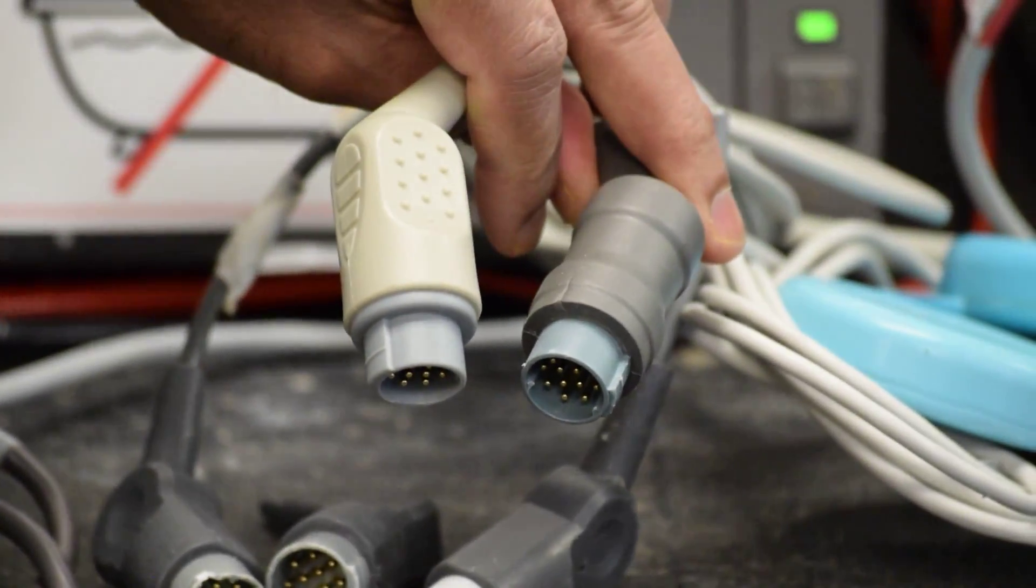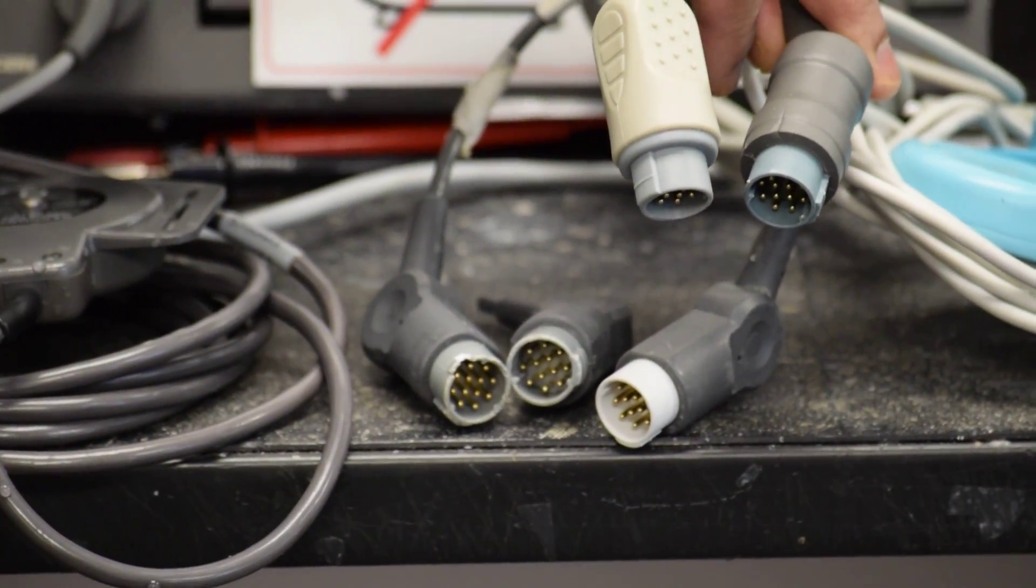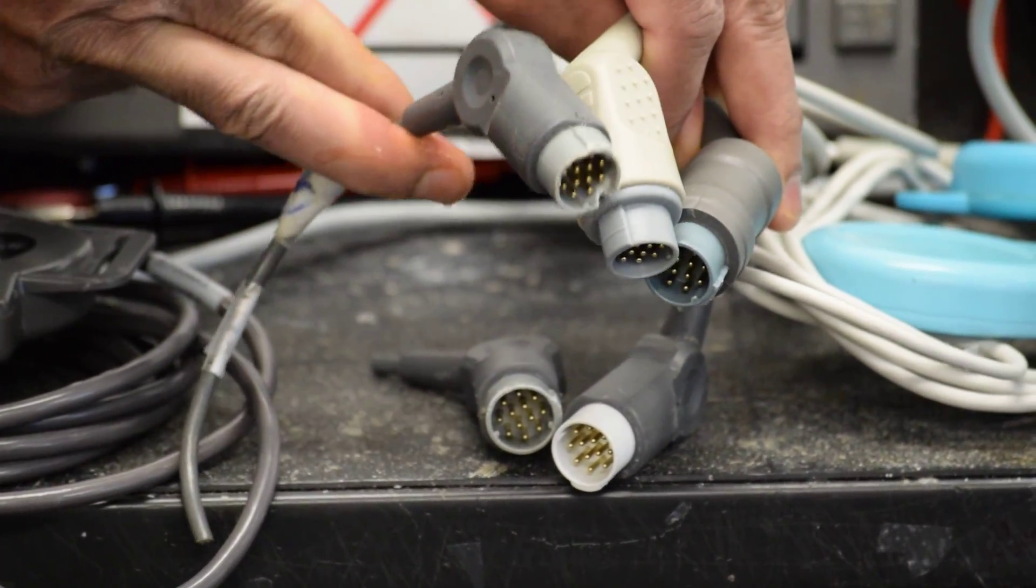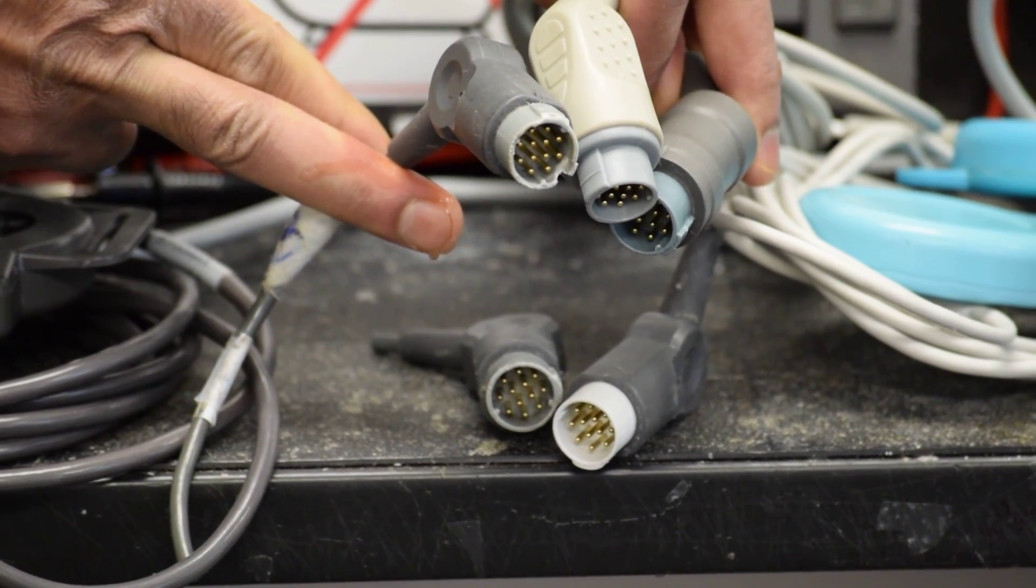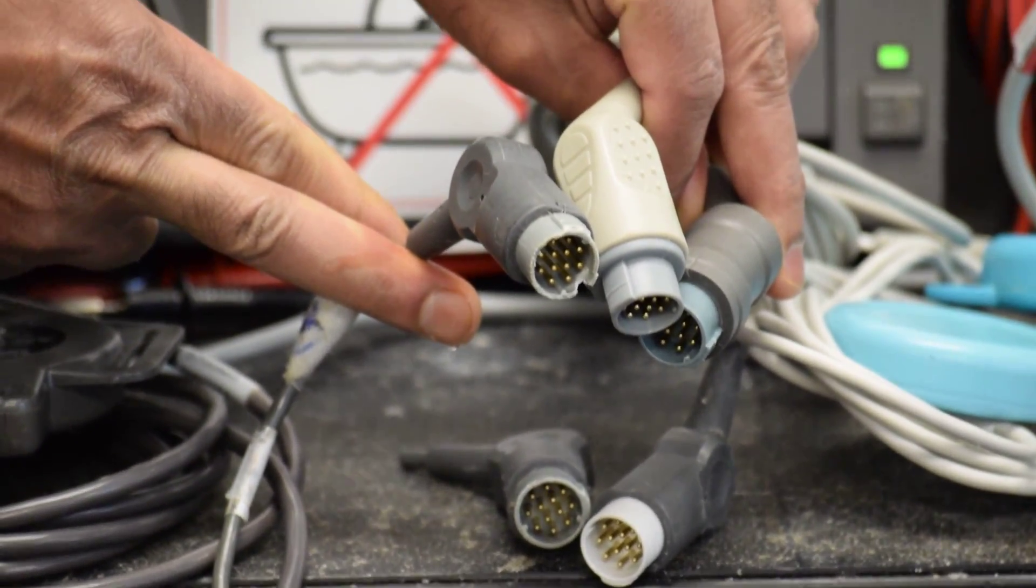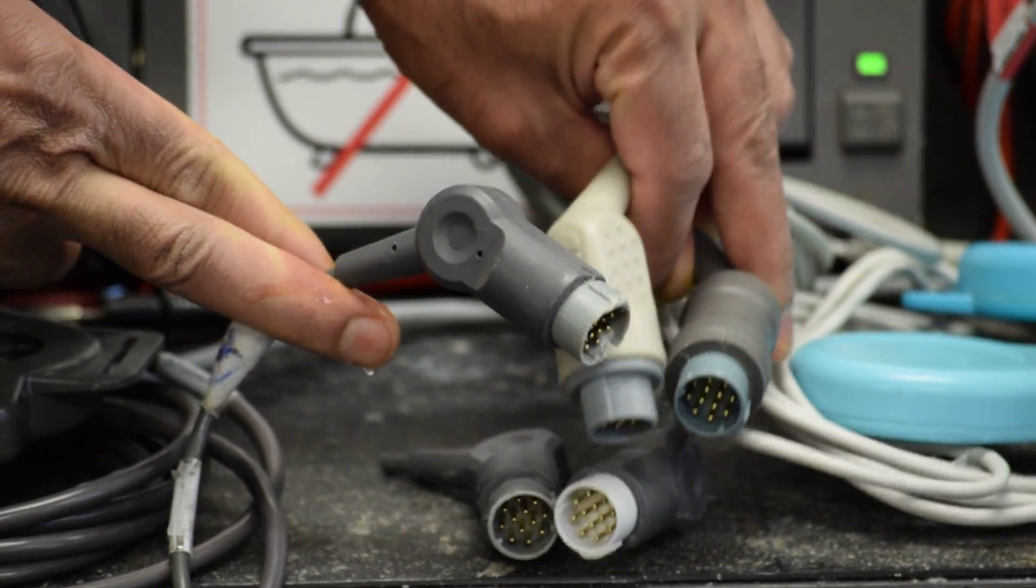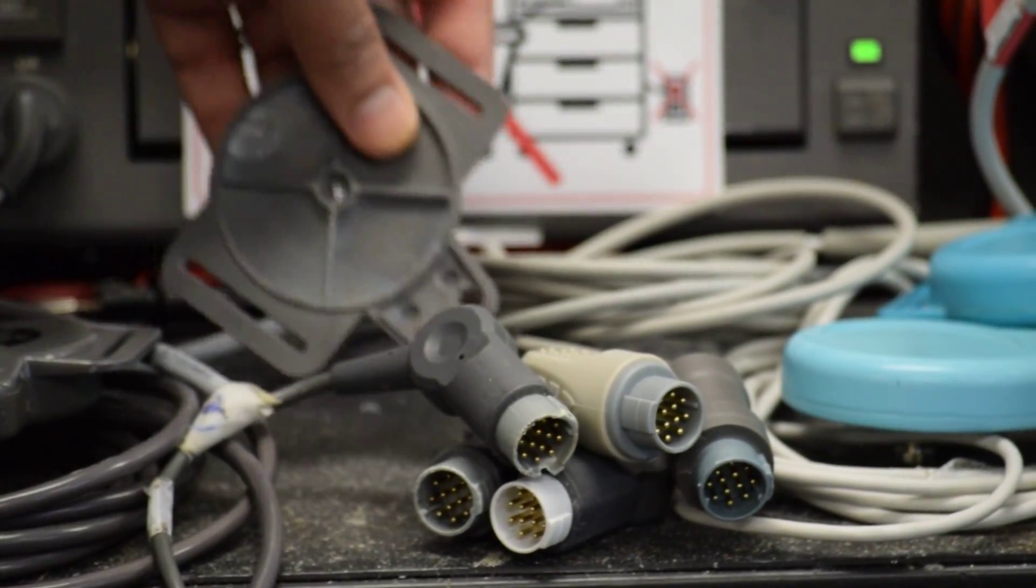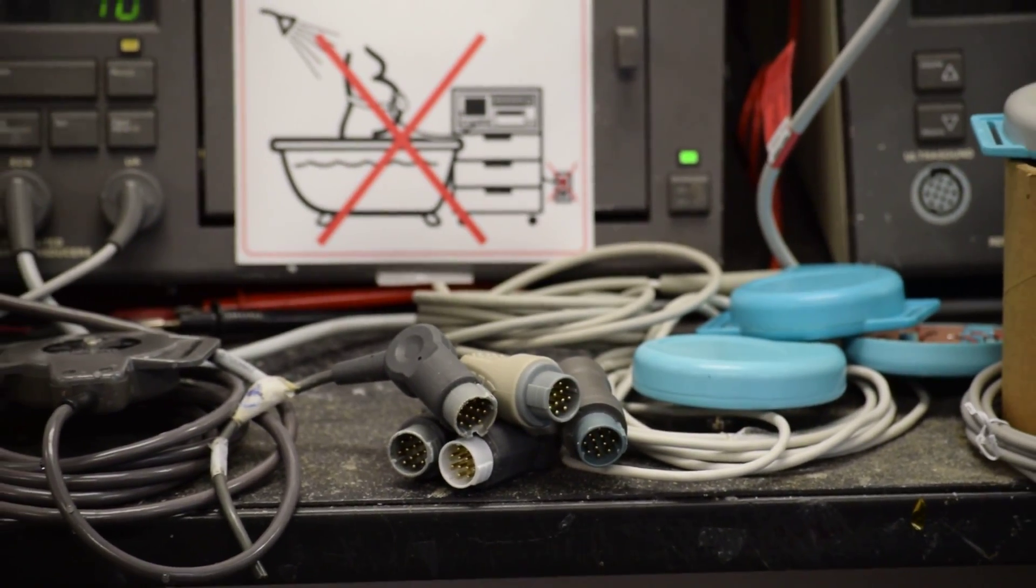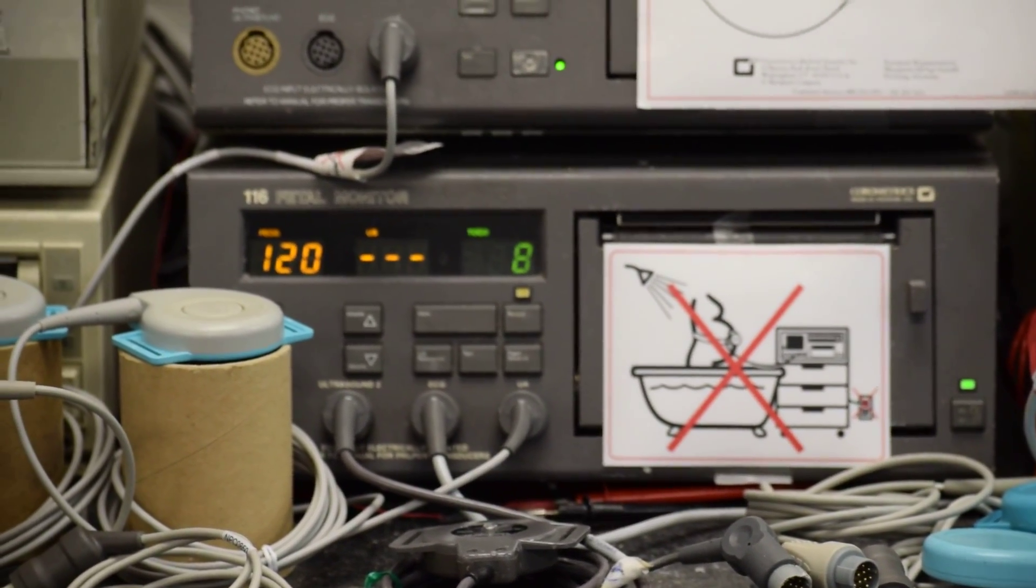The various types - the most pathetic ones are here. You can see the breakage with very little impact force or plug-in force. While putting them onto the fetal monitor, these get damaged and they damage the socket on the fetal monitor.